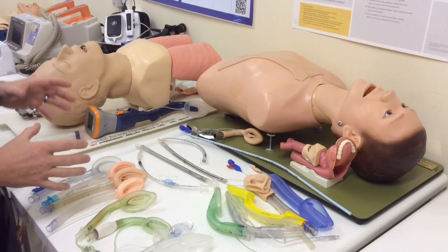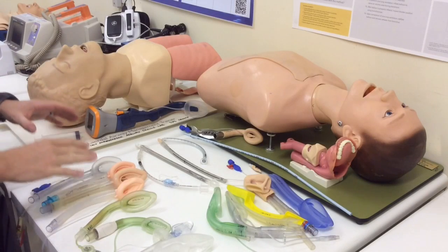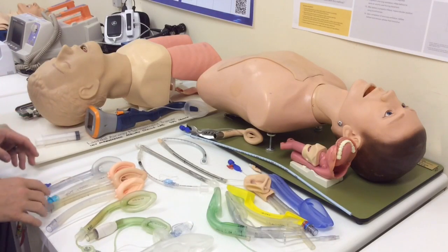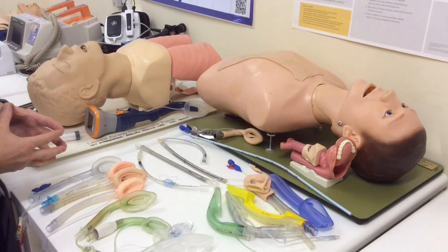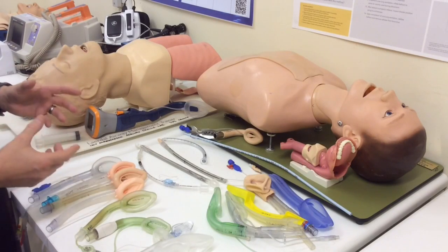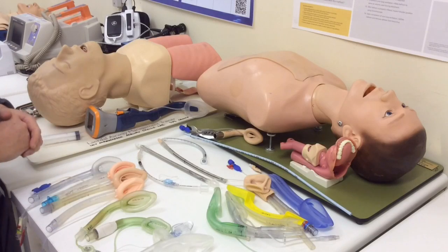Your strategy is going to be determined to a large extent by what supraglottic airway is in place, because the structure of different supraglottic airways does or does not allow an adequate-sized endotracheal tube to pass through them.